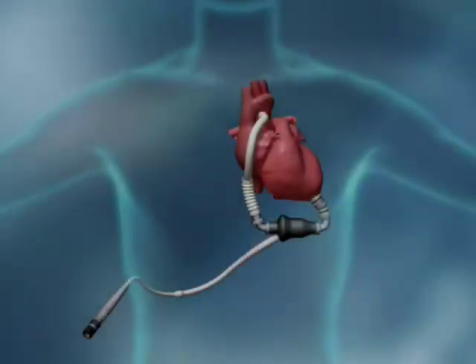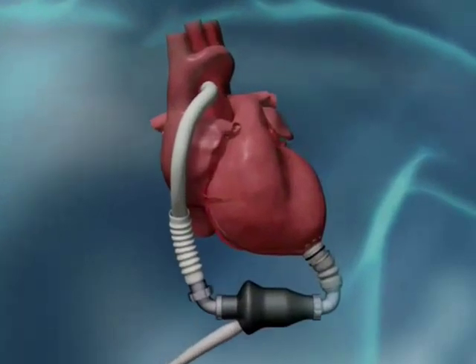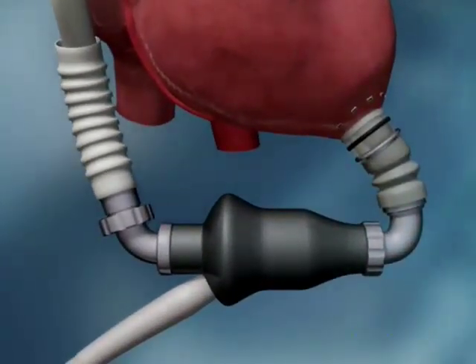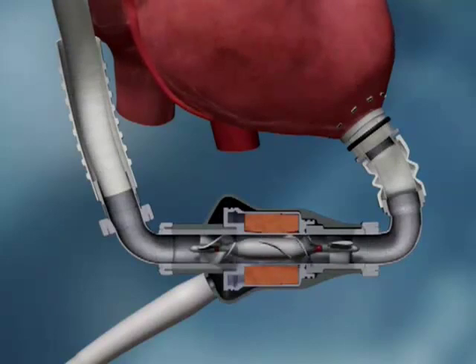The HeartMate 2 is a small and quiet advanced blood pump designed for improved outcomes with a wide range of late-stage heart failure patients in need of reliable, long-term circulatory support. 60% smaller than currently approved implanted electric pulsatile LVADs and weighing only 400 grams, the HeartMate 2 incorporates precision engineering, a simple design and 30 years of clinical experience. It is intended for long-term support or for permanent implant, known as destination therapy.